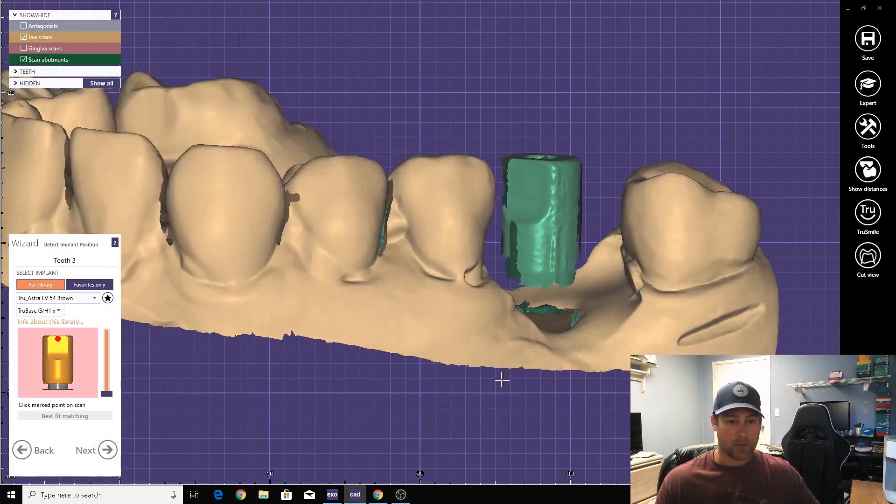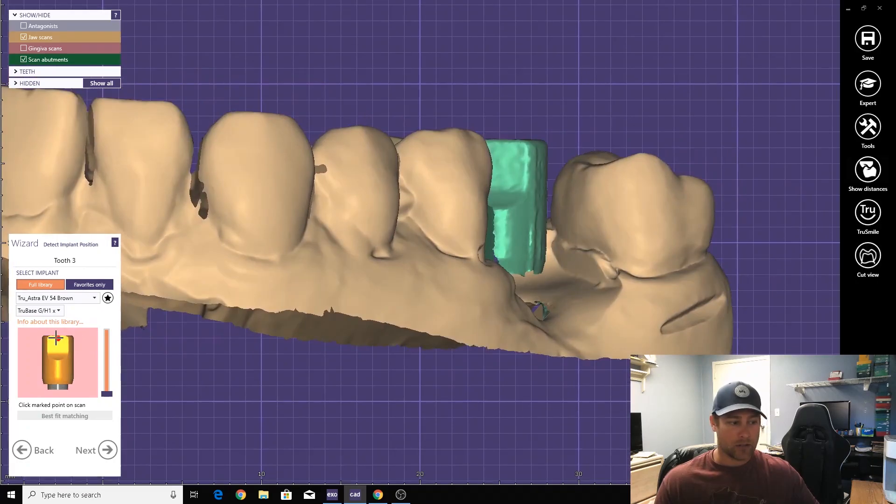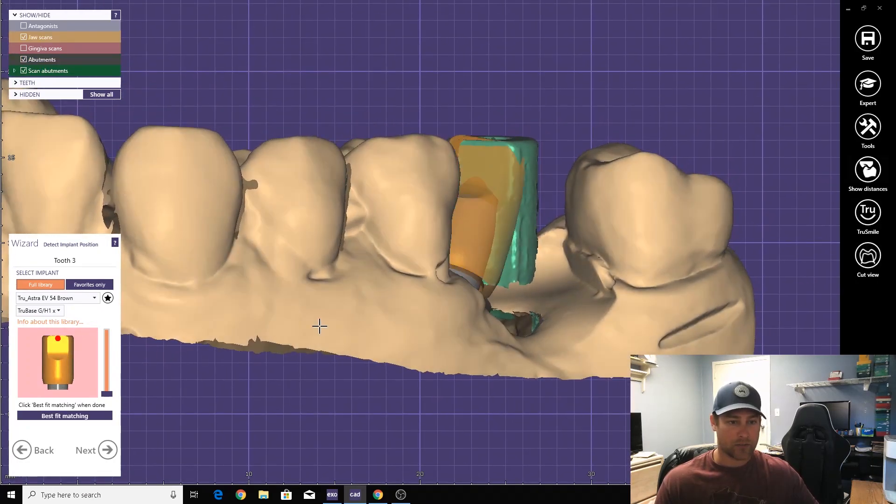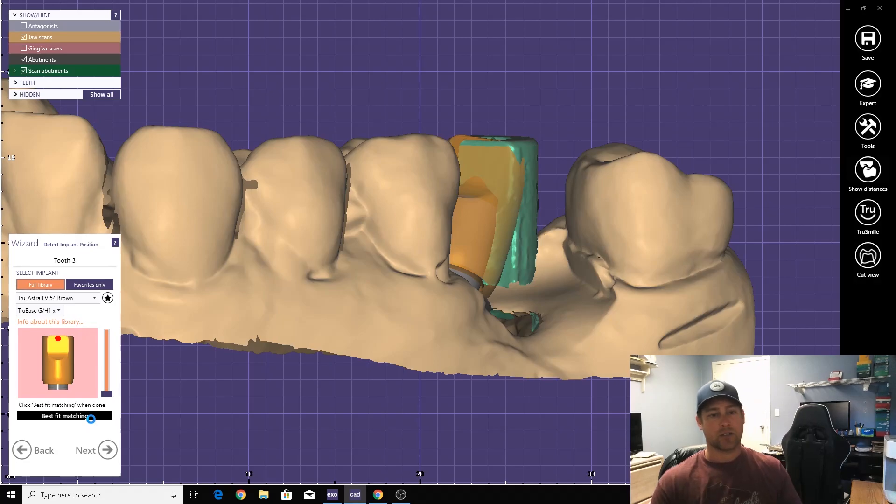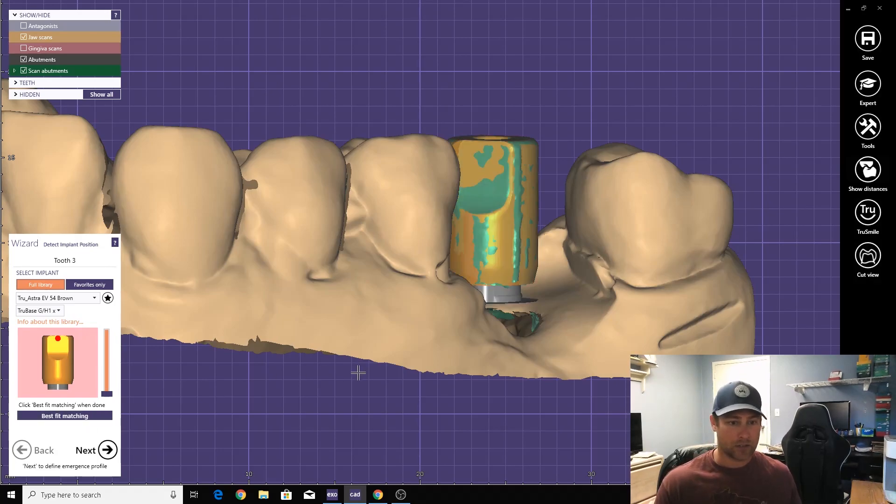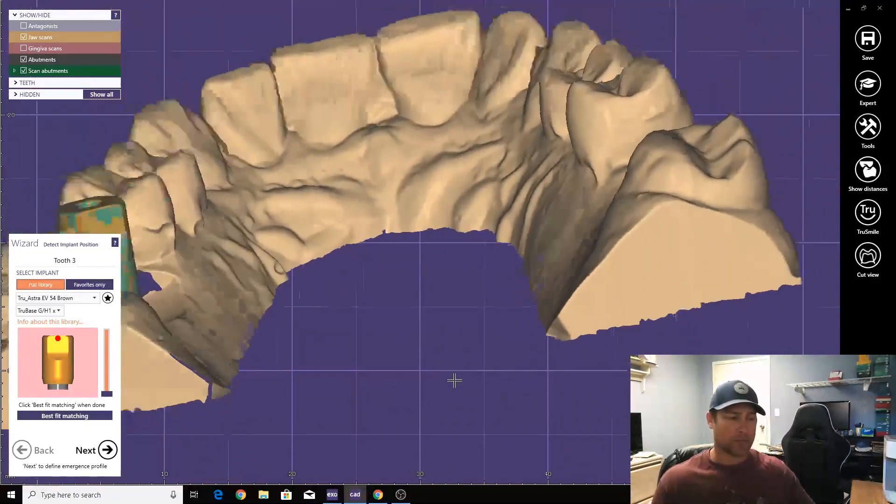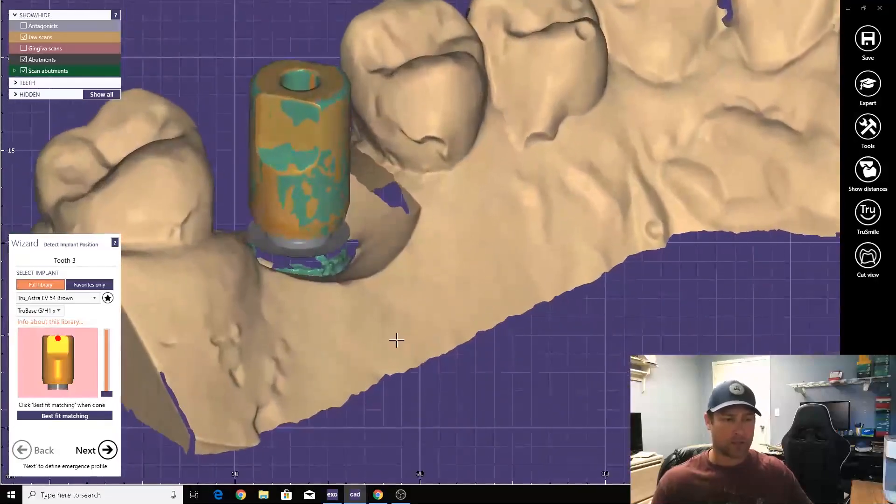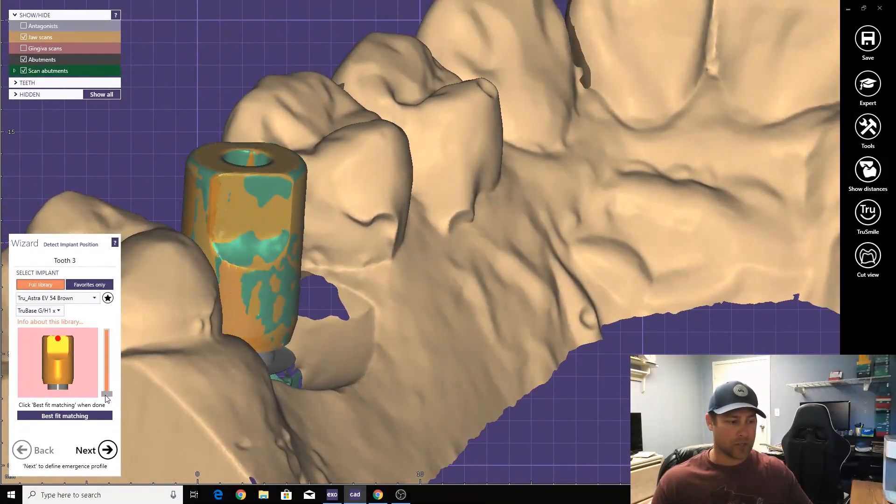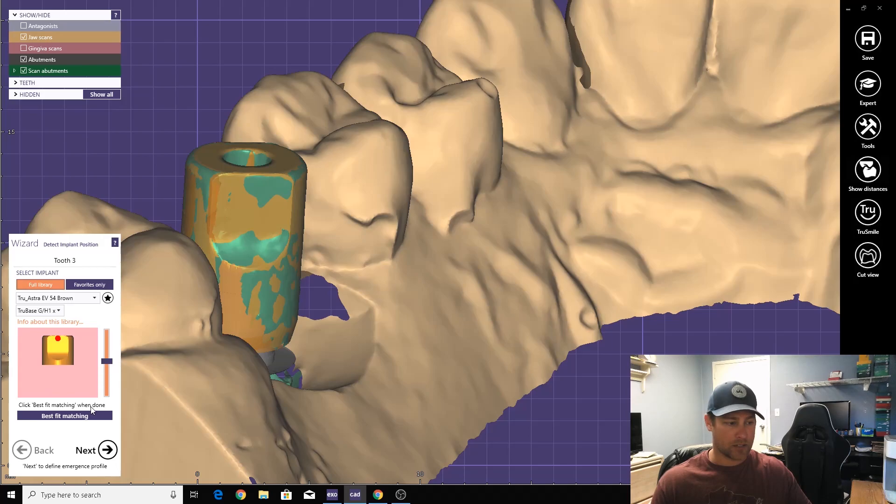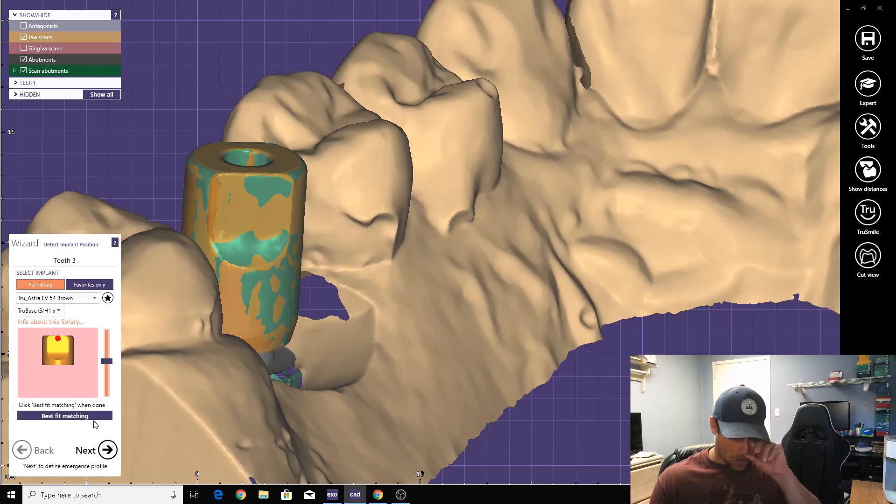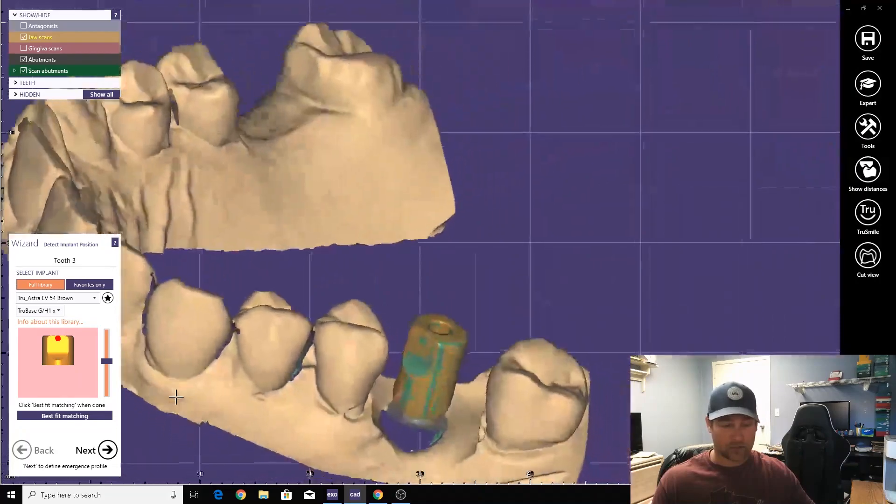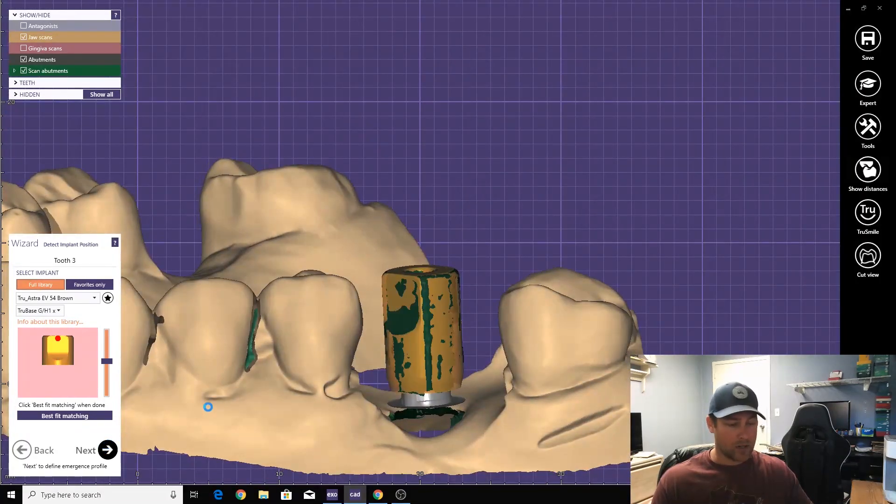This red point right here, try to get it right here. Match, and often times it matches pretty well. It's not perfect. Change the height of where it reads the data to. And there you go. And that'll work.